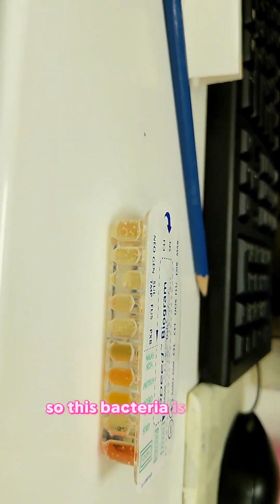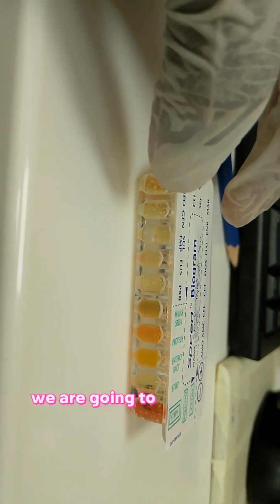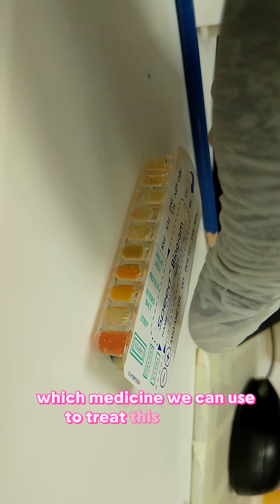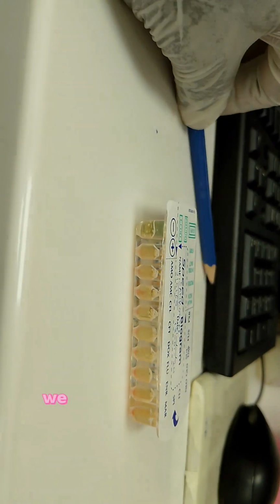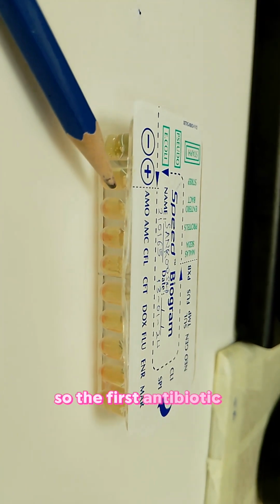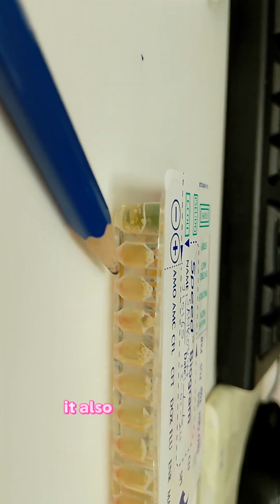So these bacteria are present. We are going to check which medicine we can use to treat this problem. So we come to the antibiotic side. The first antibiotic is amoxicillin, and amoxicillin has red streaks.